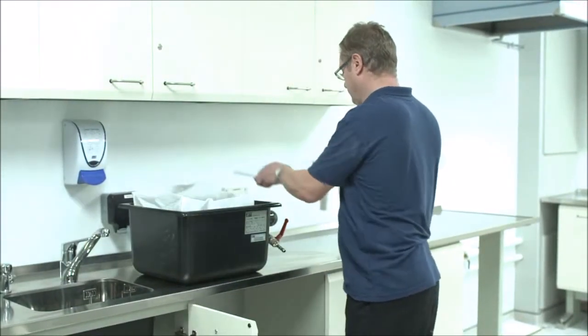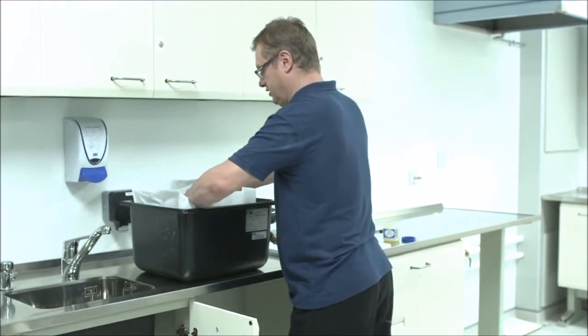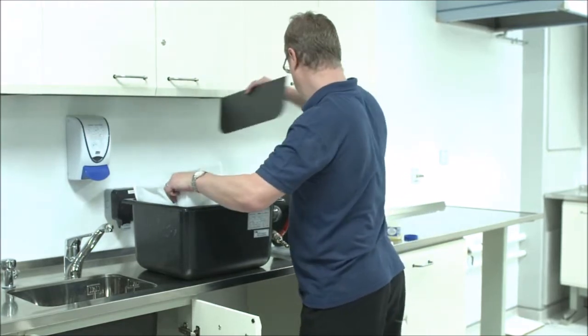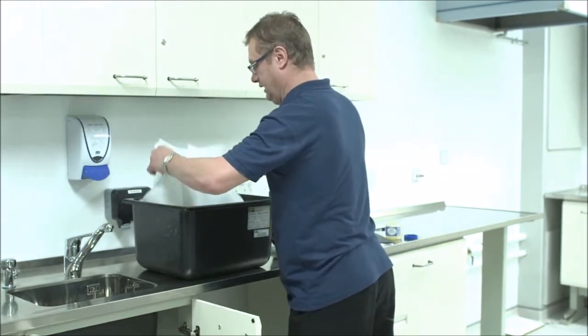Take off the lid. Remove the dividers first and then take out the bag and dispose.